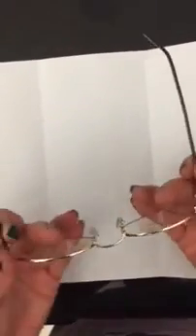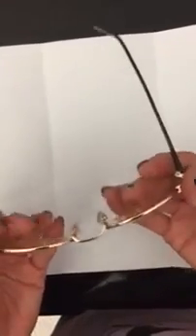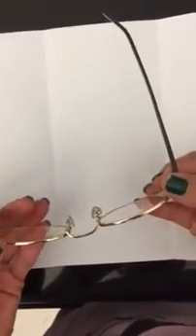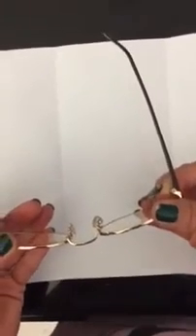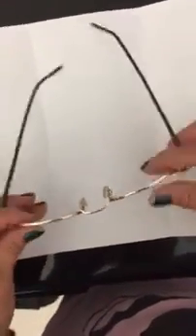Another vertical alignment. These are now vertical alignments. 4-point touch are now vertical alignment. Theoretically, the nasal and the temporal eye wires must touch. The next vertical alignment is what we know as face form. Most frames have some face form. The ideal position is to have the frame PD equal the patient PD, and that will help you tell if you're going to add a little bit more face form or take some away.